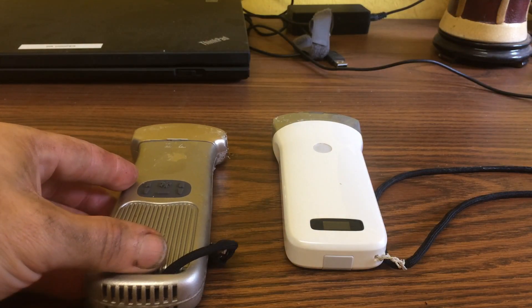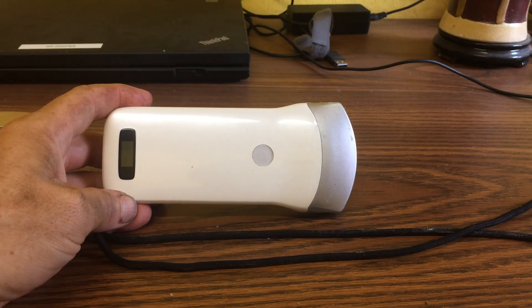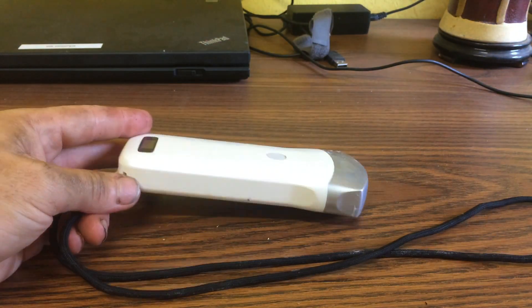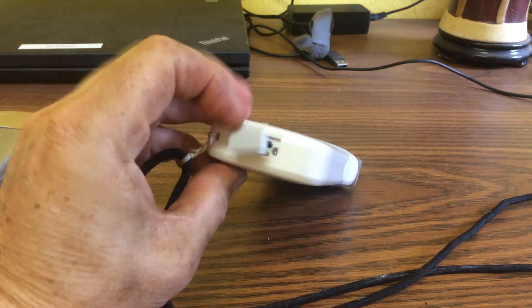The first unit is made by a company called Sonostar. It's really hard to know what is a bona fide company from these Chinese companies, but Sonostar seems legitimate. This probe cost me about $1,800 on eBay, purchased through a supplier called ChenMa79200. It's a 128-element curved probe, seems well-built, and runs off a lithium-ion battery. I've taken it apart — it's not hard. You open where the charger is, there are two little screws, and you loosen the housing.